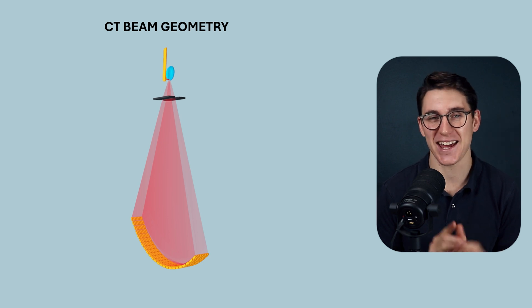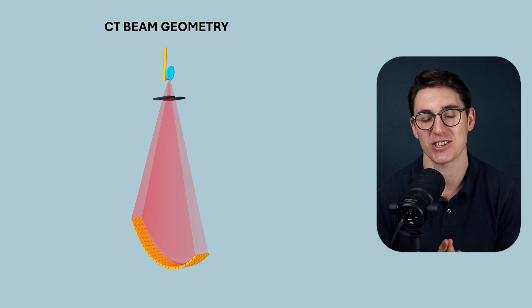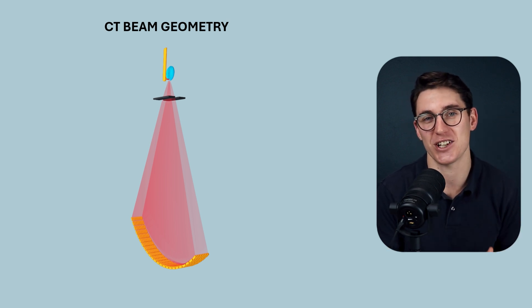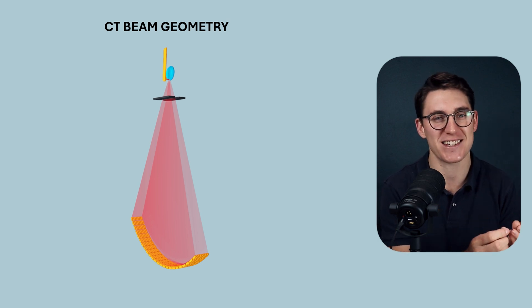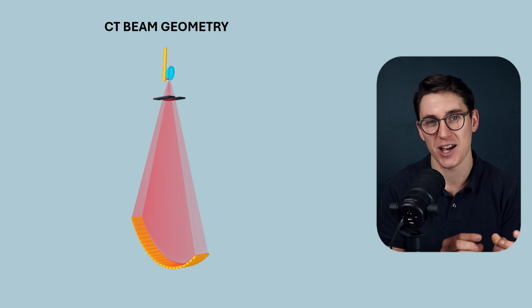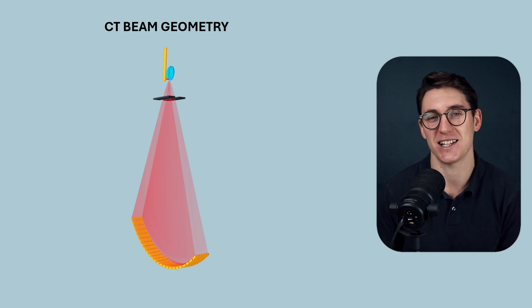Hello everybody and welcome back. Today I want to define a few key terms that we're going to be using throughout this CT physics course. Each term will relate specifically to the geometry of third generation CT scanners. Each one of these concepts isn't that difficult to understand in isolation, but that mustn't undermine their importance as we move on to more complicated topics later on.